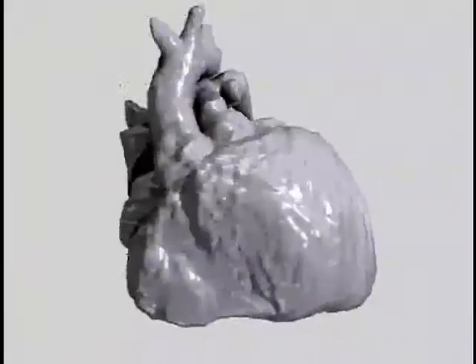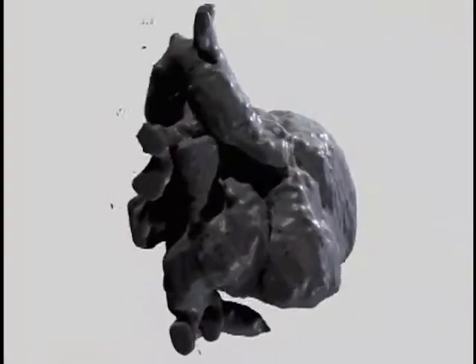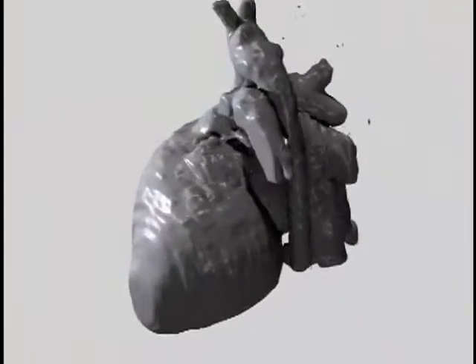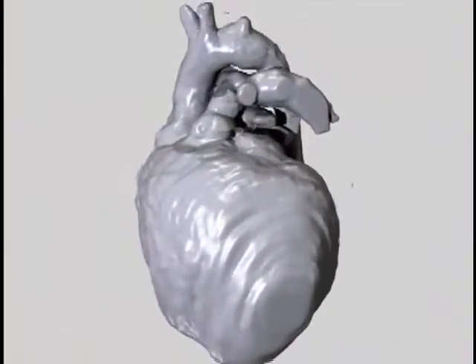With some effort, patient-specific three-dimensional models of the heart can be reconstructed from these MRI datasets.